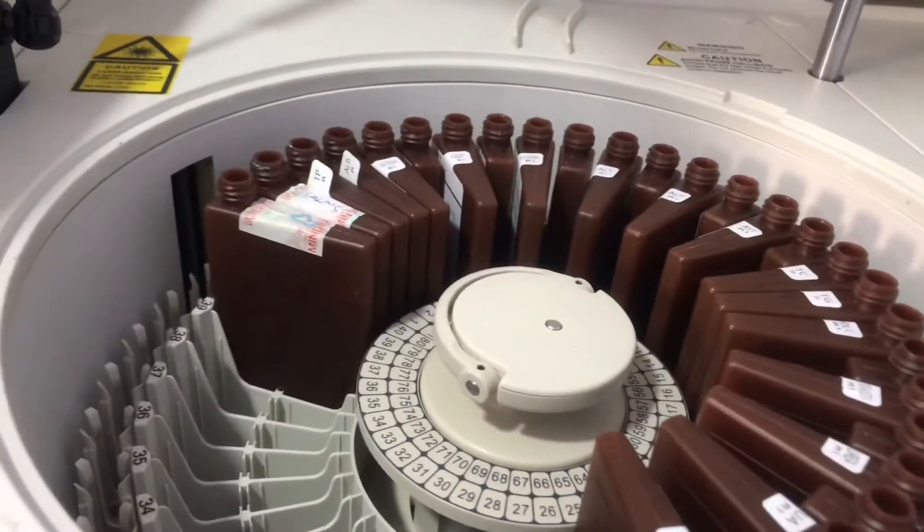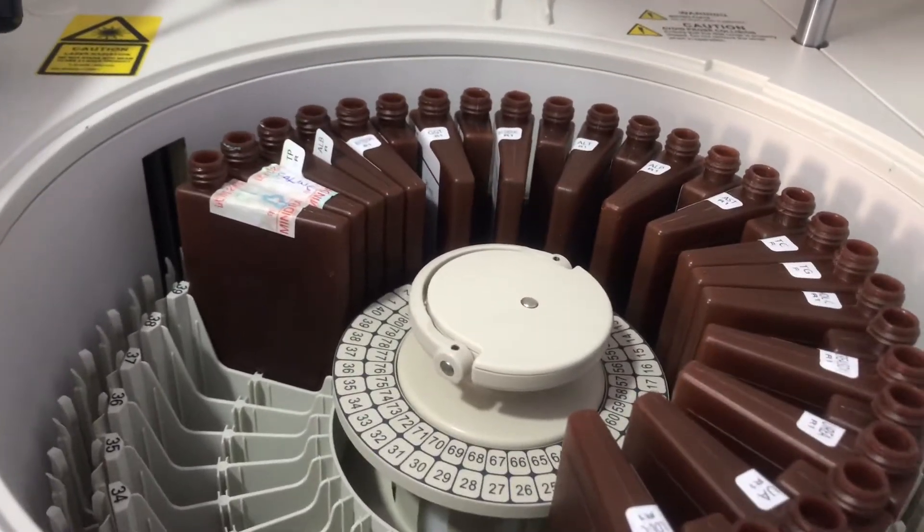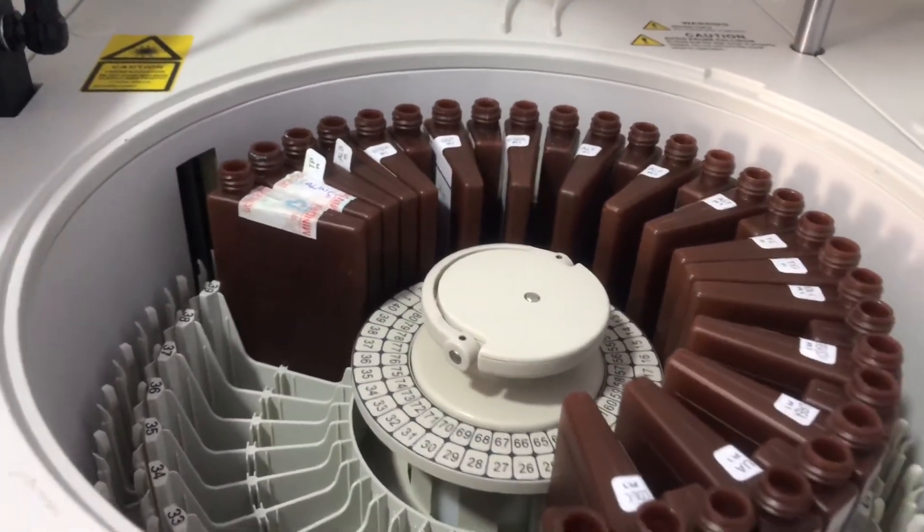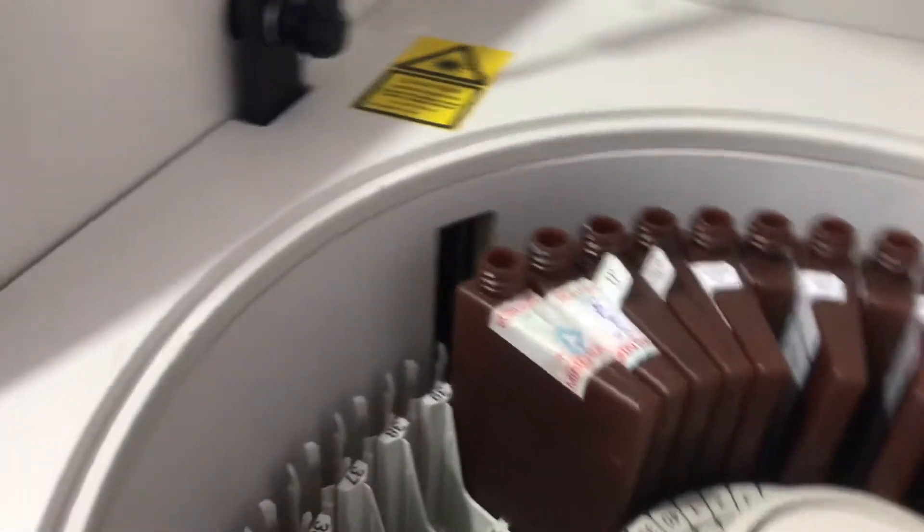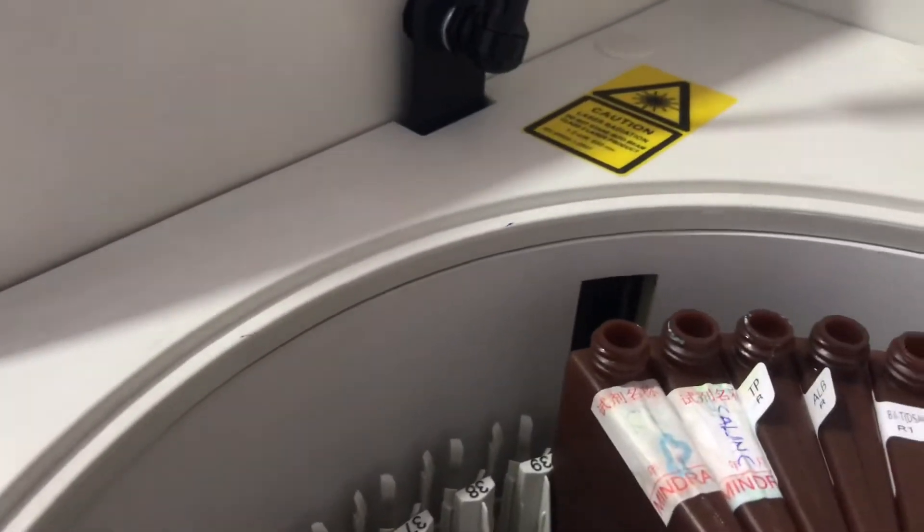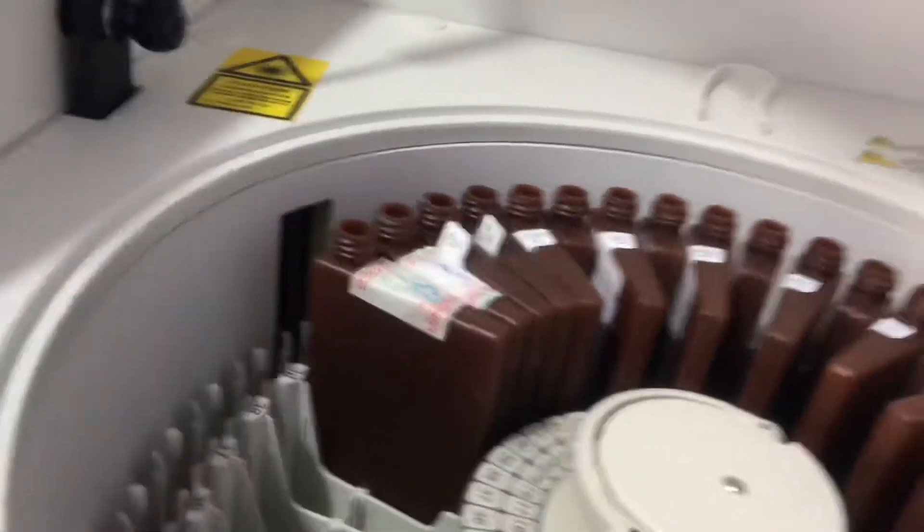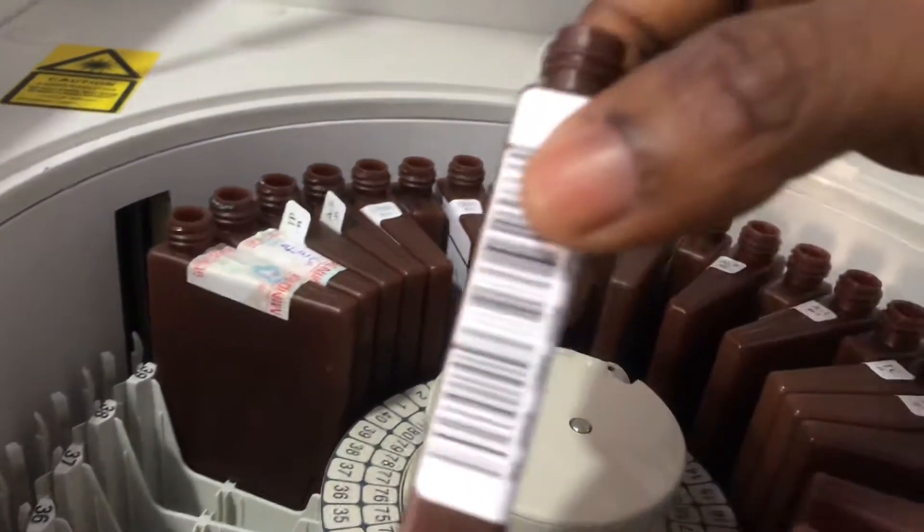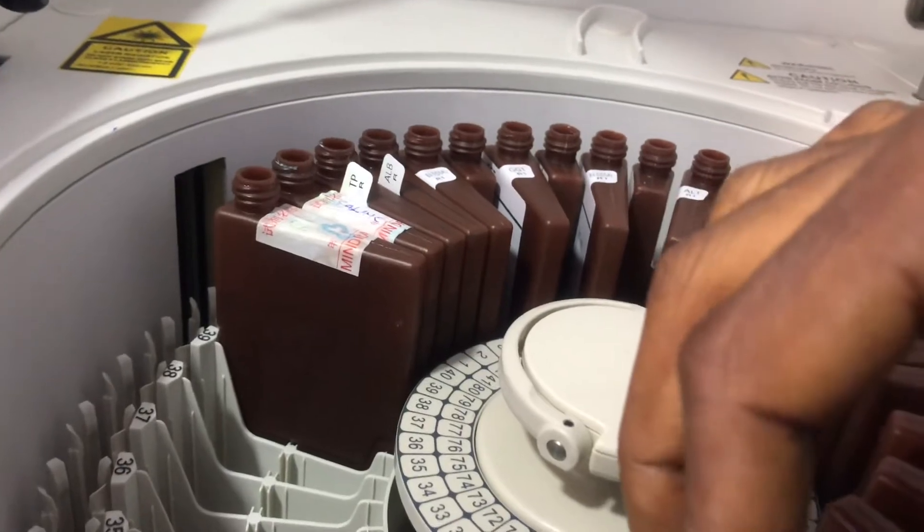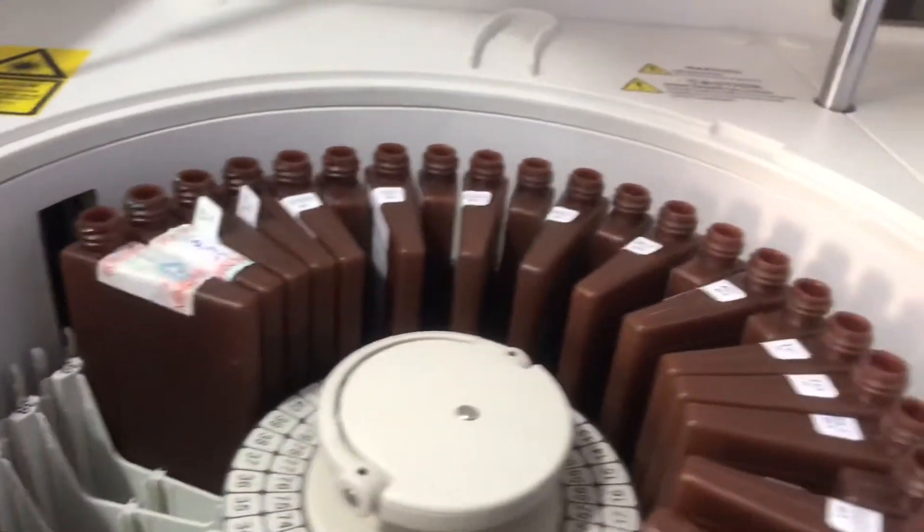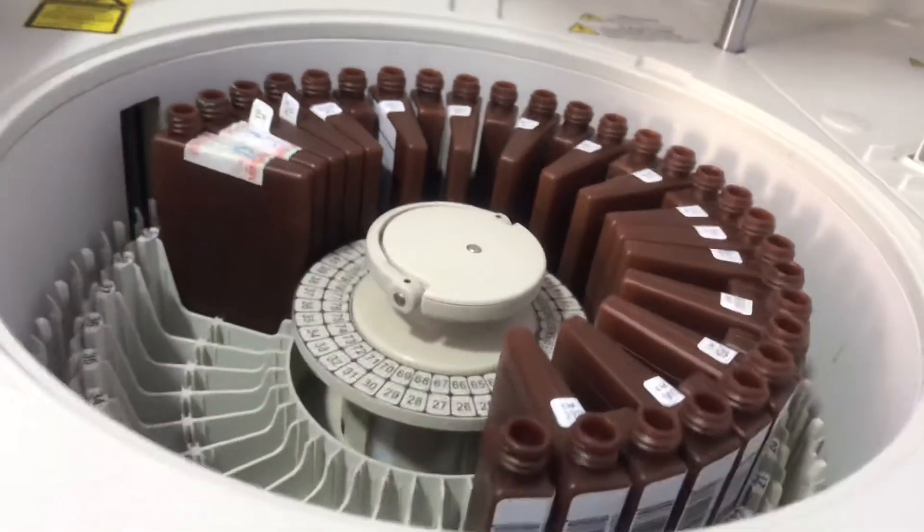Apart from the reagent bottles and sample bottles, this whole compartment is refrigerated. The temperature is maintained around 2 to 12 degrees Celsius, plus or minus 0.3 degrees Celsius. If you look here, the window actually has a barcode scanner which scans the barcode on the reagent bottles.